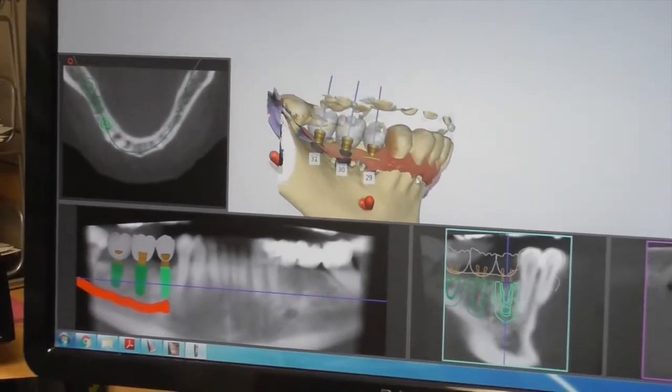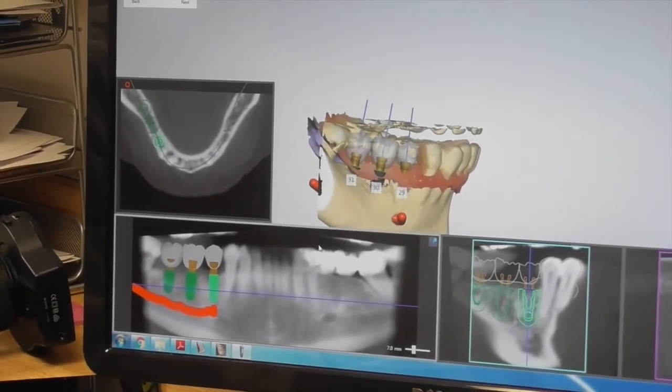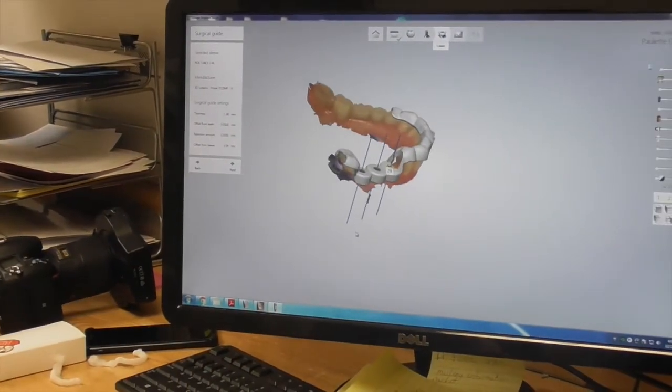So in this case, we have three implants with three exact placements of the implants virtually on this computer. The next step would be to design the surgical guide.